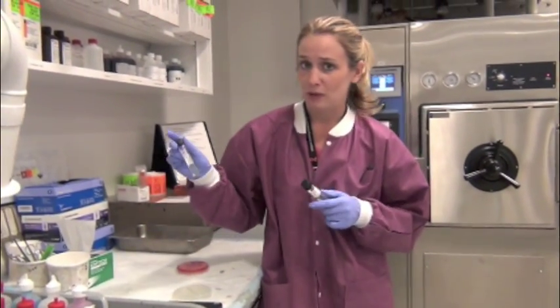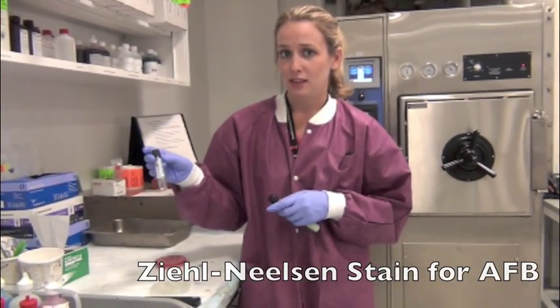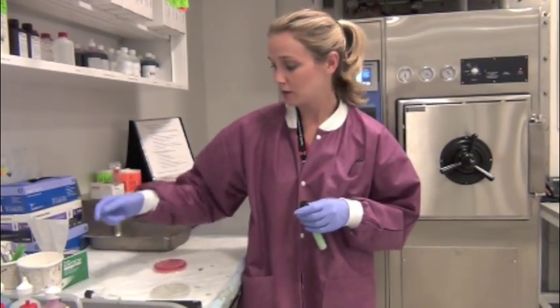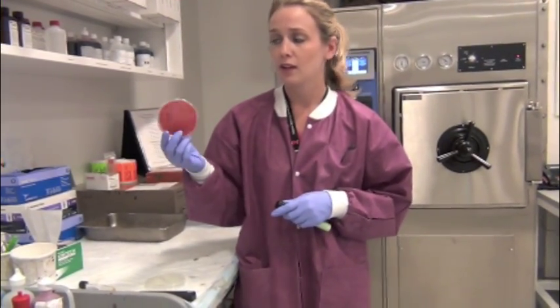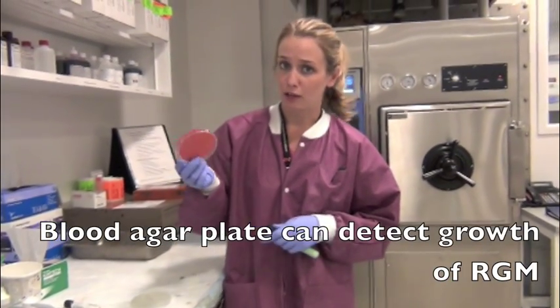So once our MGIT tube has been flagged as positive and we stain it with the Ziehl-Neelsen stain, confirming the presence of acid-fast bacilli, we will take a small sample and plate it onto a blood agar plate, which is what is used commonly in the bacteriology lab. This can check for contamination and is also good growth for rapidly growing mycobacteria.